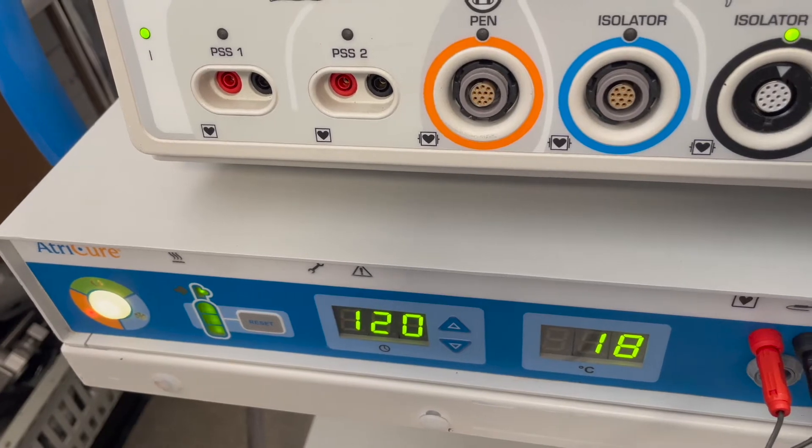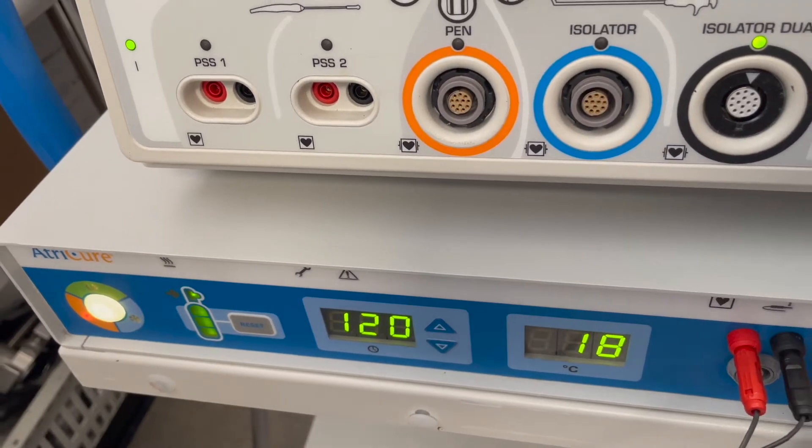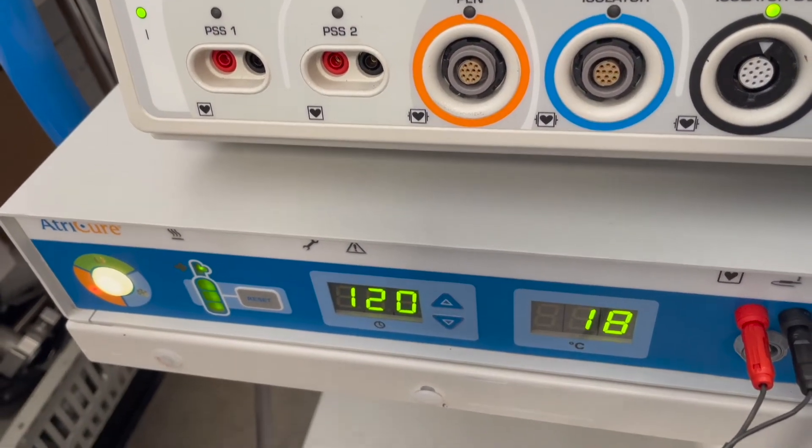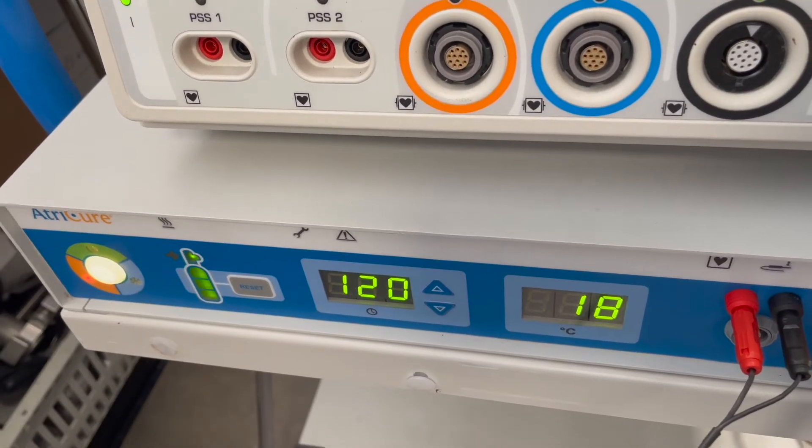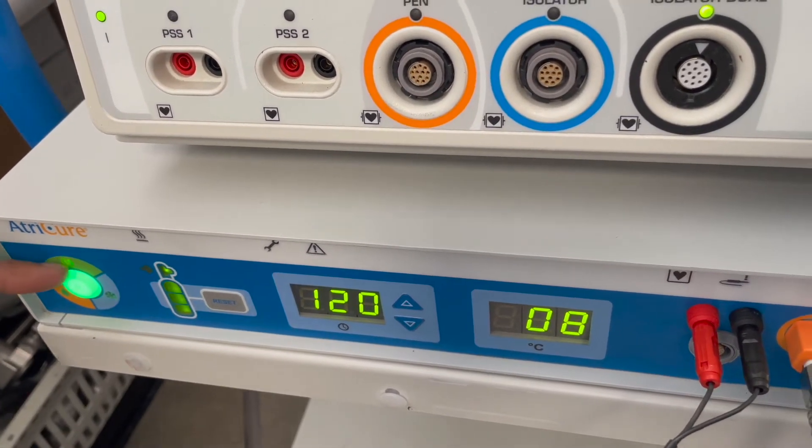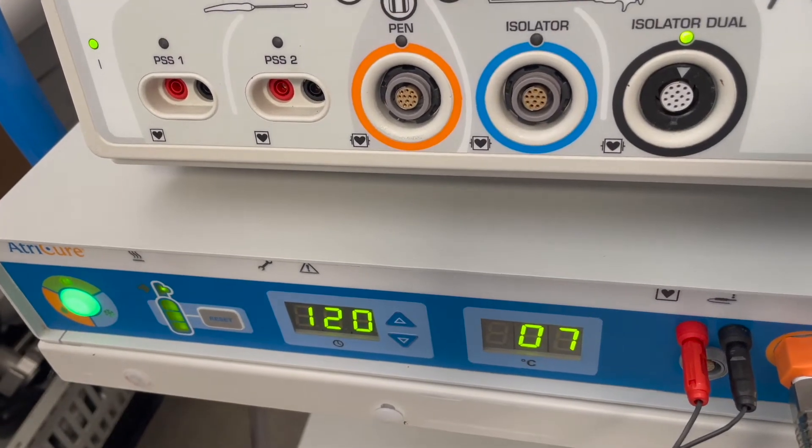It doesn't happen quickly because it gives it time to defrost and time for you to pull it out. If it does take a long time you can just press it one more time and it'll go into standby mode. It's back in standby mode and it's vented out through this.